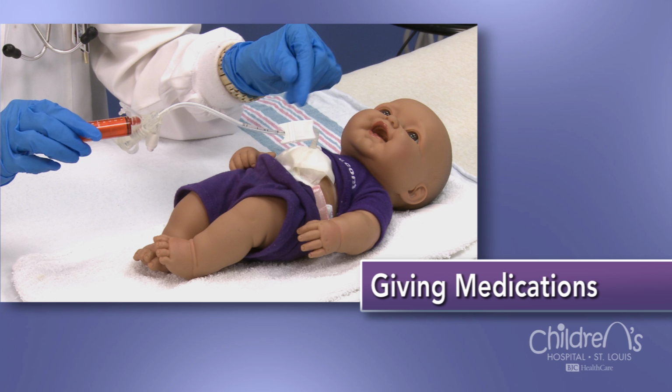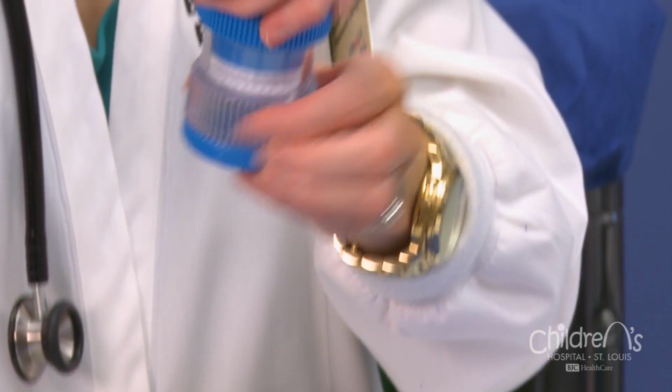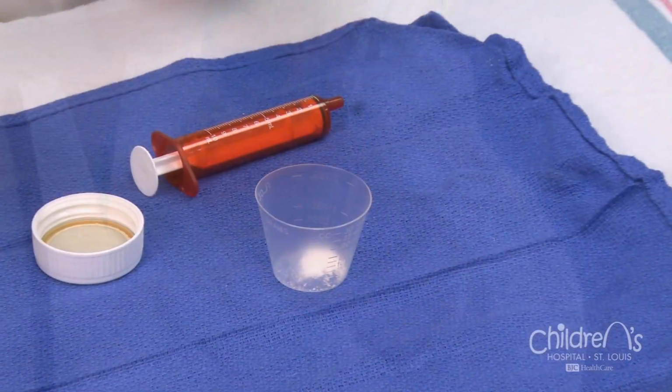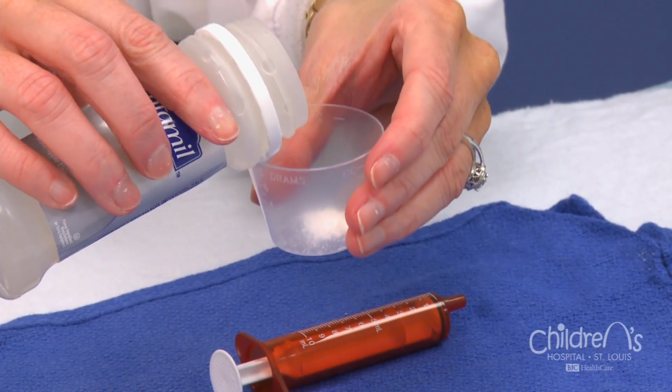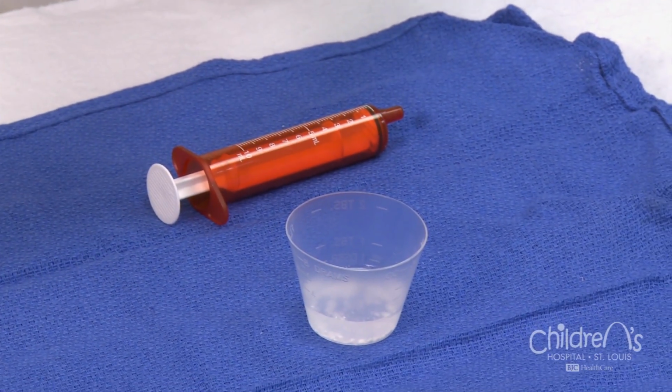When your child must receive medications through the G-tube, ask your pharmacist to dispense all medications in liquid form if possible. Ask the pharmacist whether you can crush the tablets or open the capsules yourself if a liquid form is not available. Then dissolve them in water before delivering them through the gastrostomy appliance.